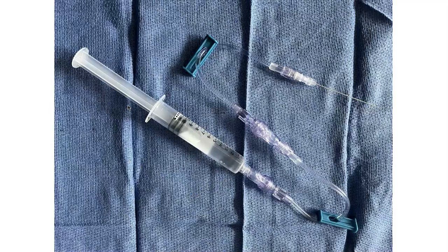If you don't have access to the echogenic needles, you can still make your own similar device. Shown here is a spinal needle with two or more sets of IV tubing connected together, again flushed through with saline.